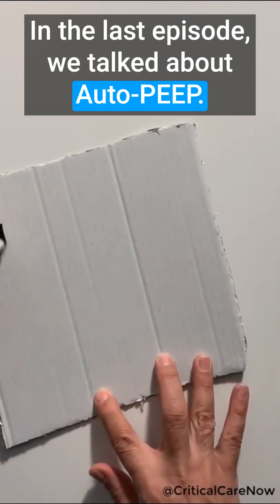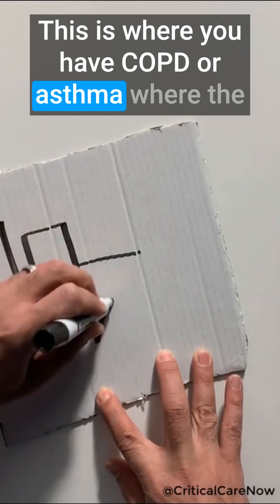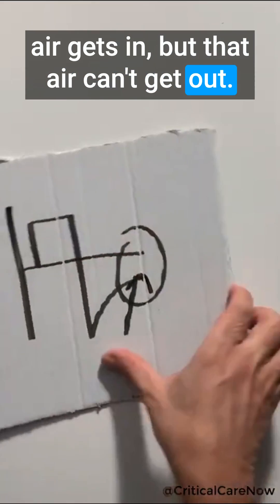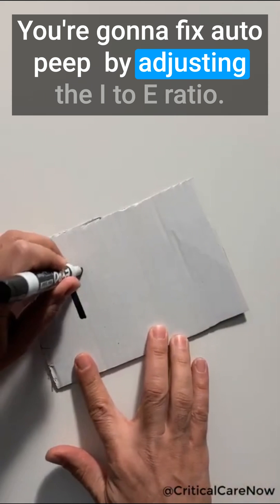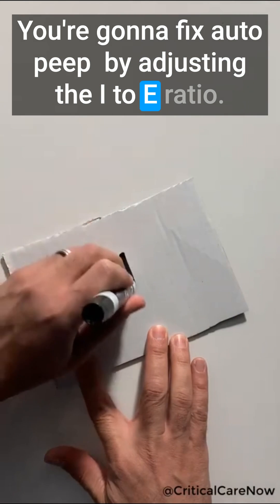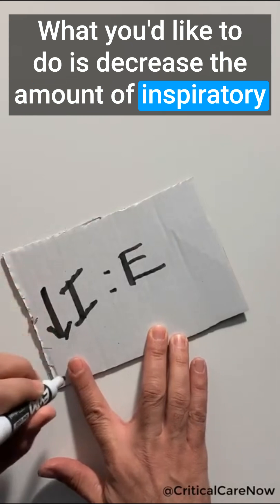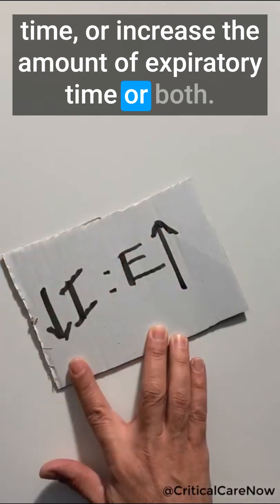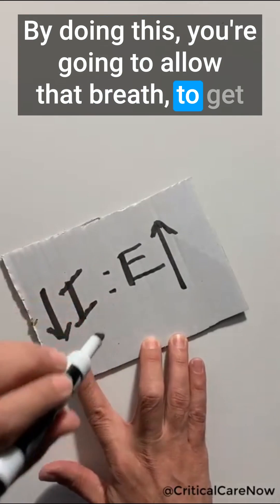In the last episode we talked about auto-PEEP. This is where you have COPD or asthma where the air gets in but can't get out. You're going to fix auto-PEEP by adjusting the I to E ratio. What you'd like to do is decrease the amount of inspiratory time or increase the amount of expiratory time, or both. By doing this you're going to allow that breath to get out at the end of expiration.